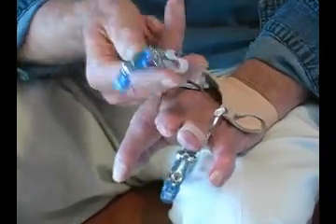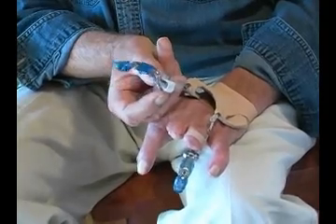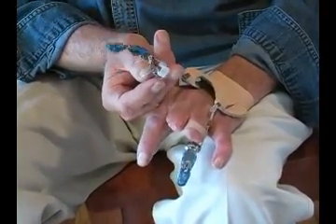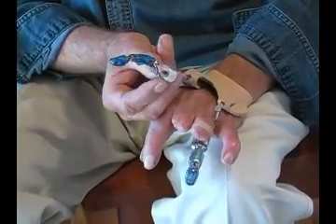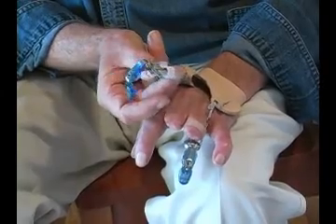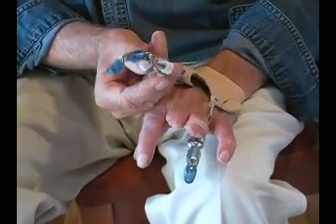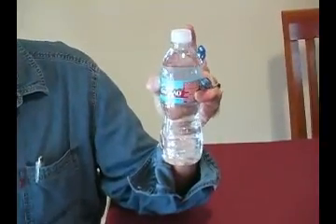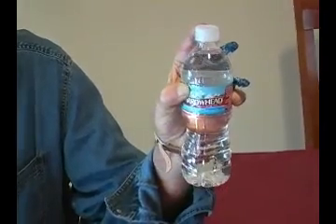As you can see, it curls naturally. And it's all controlled by this pan or actuating lever that is attached to your residual finger. That's where you get the action of it, and that is also where you develop the grip, because you are able to put pressure. The more pressure you put on the pan, the more the finger will curl.